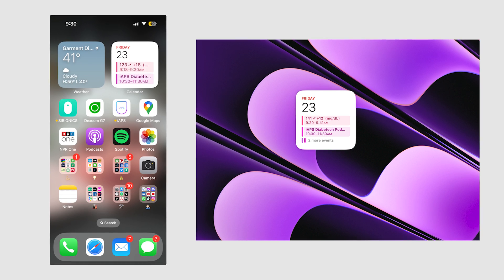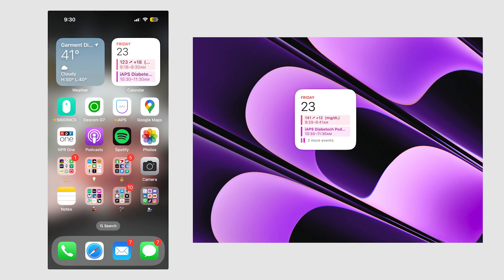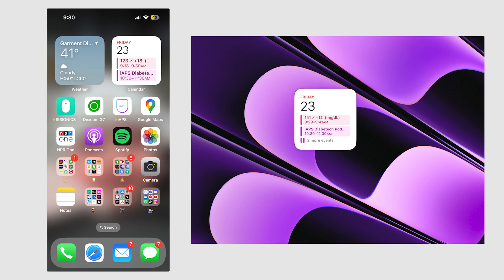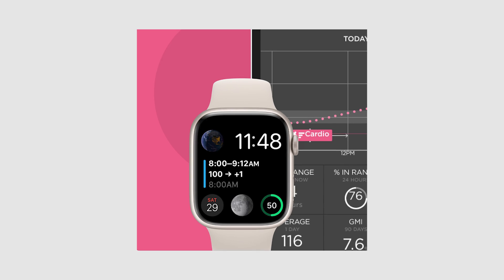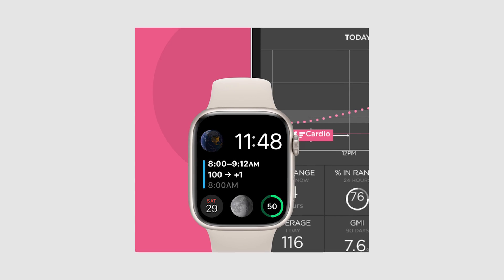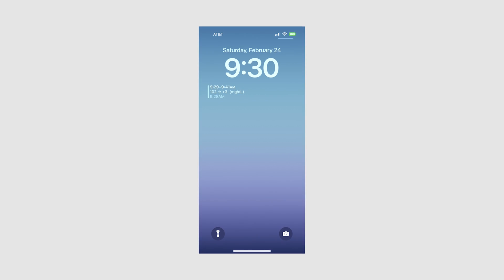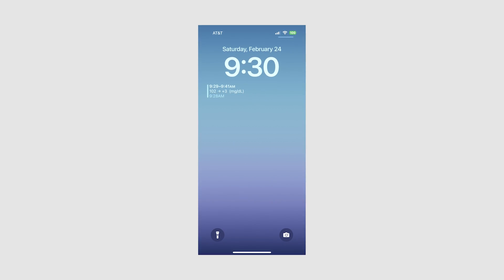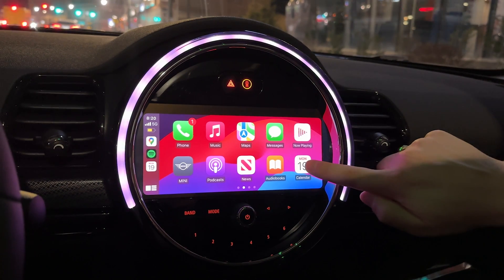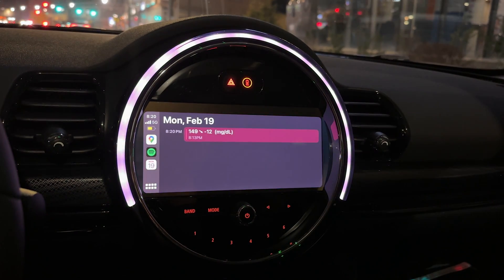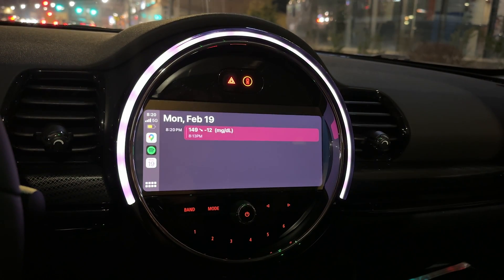These calendar events can now be viewed on calendar widgets on iPhone, the Mac desktop, and Apple Watch watch faces, as well as the lock screen on an iPhone using the iCal widget — and any car with Apple CarPlay. Let's hop in the car to see what it looks like.